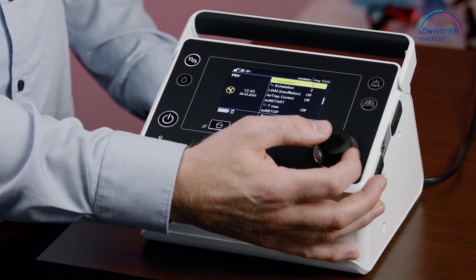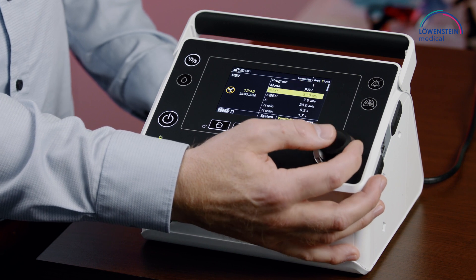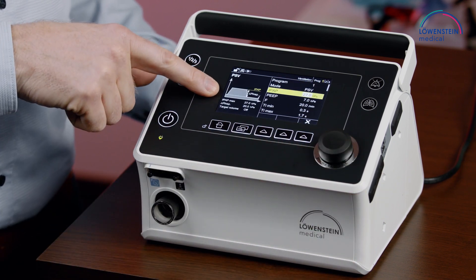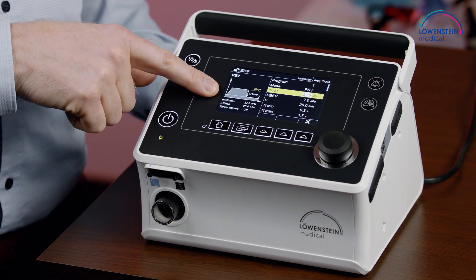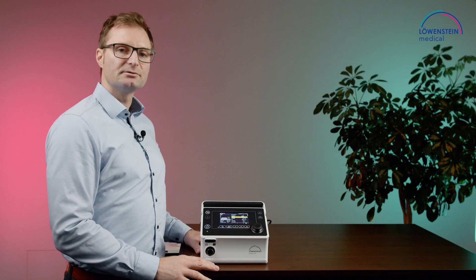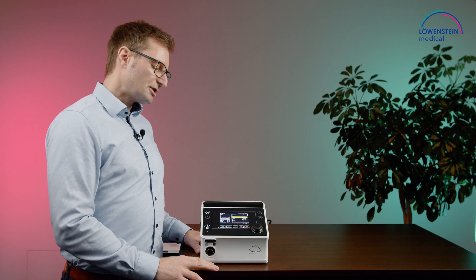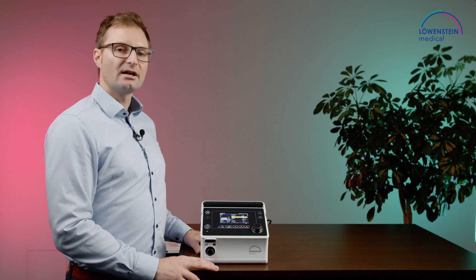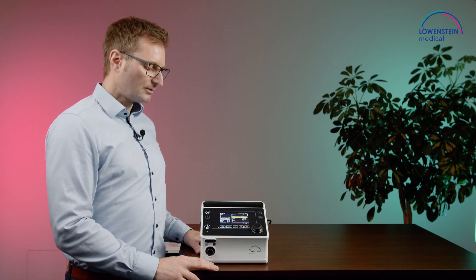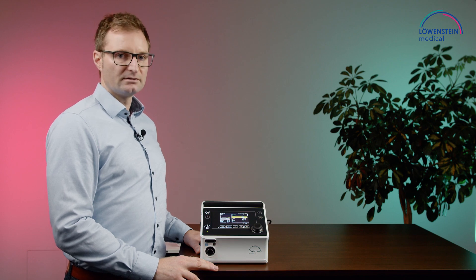Additionally, if we go back to, for instance, a pressure level, on the left side of the screen you see a graph, and this graph will help you to know what you are setting — which pressure level you're setting, and which values that are dependent on that setting are also affected by the new settings.